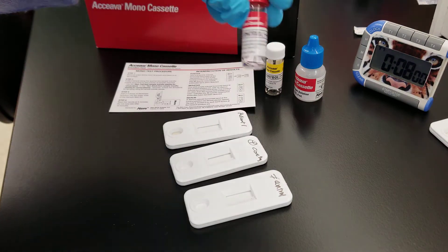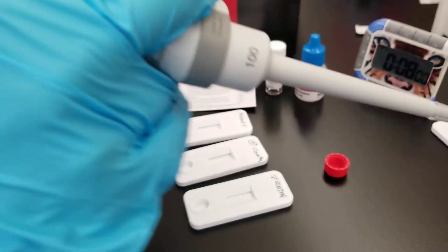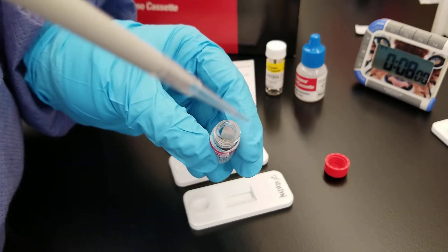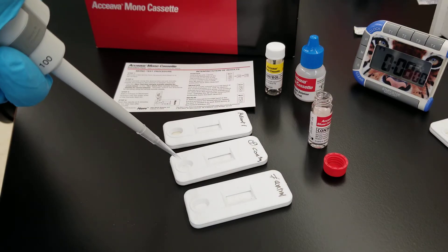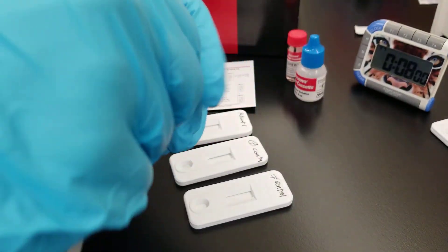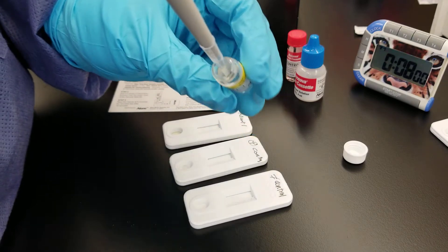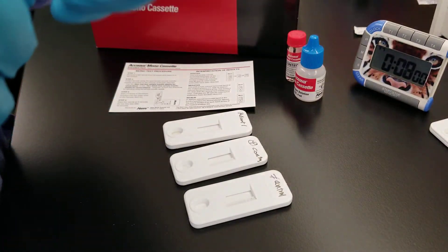So 10 microliters of this positive control. You're going to notice that there is a quick reference card in there. I'll show you the card in a minute. I'm trying to go quickly because my phone has limited space — I made a video earlier on this and it cut me out in the middle of it because of low storage. So we're going to add that to the specimen well.